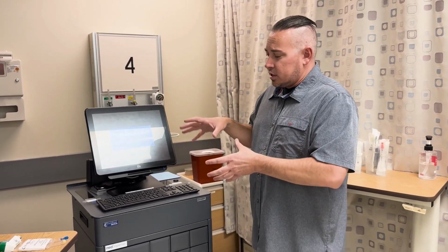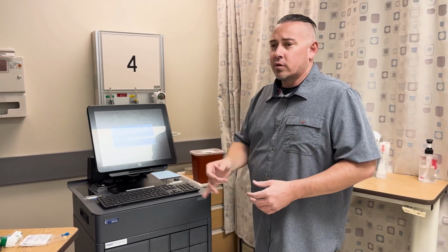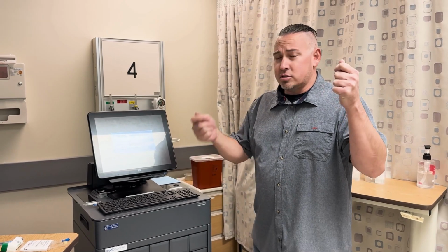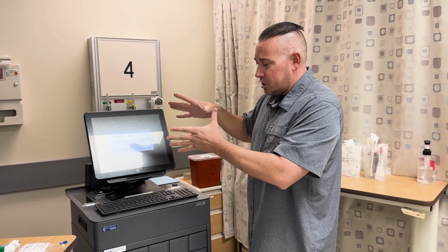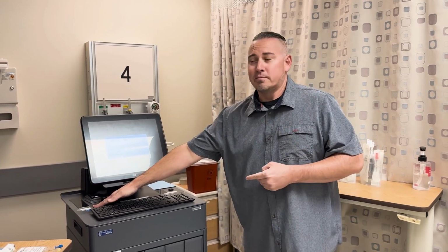The hospital keeps excellent records, and it's just a computerized program. So even if you have a receipt from Taco Bell showing you got a chalupa at 12 o'clock, if the Pyxis shows your name pulled out of Vicodin at 12 o'clock, the hospital's going to go with what the computer shows. So don't give out your password to anyone. Don't share it in real life. But for our simulation purposes, again, we've left it real easy for you. The password and the name are right there for you.